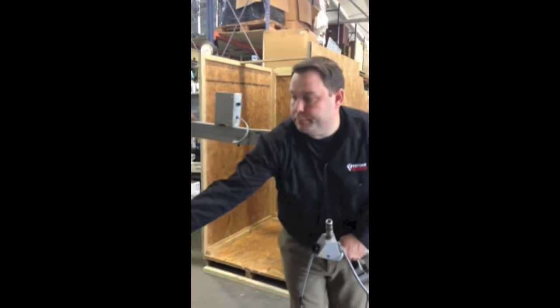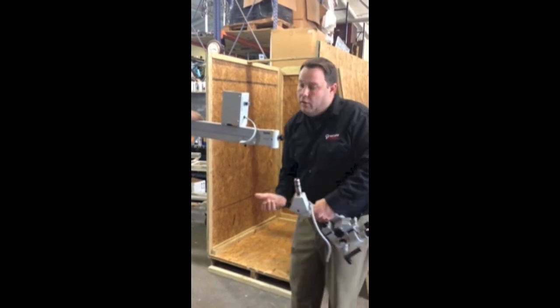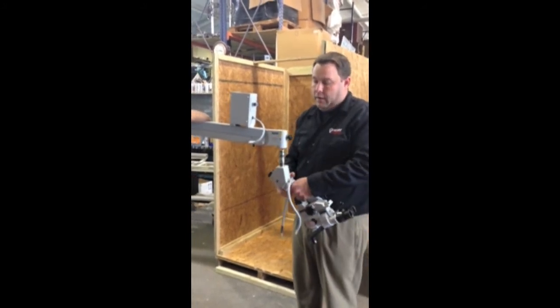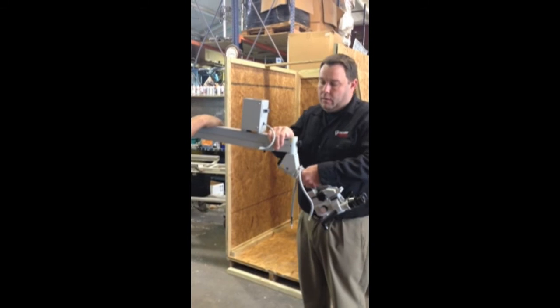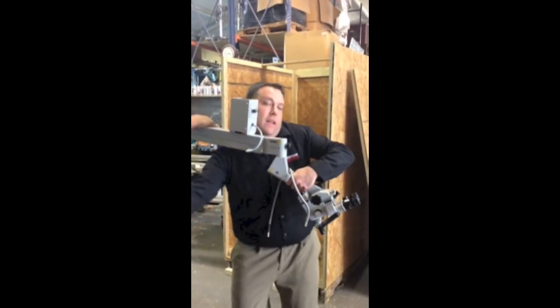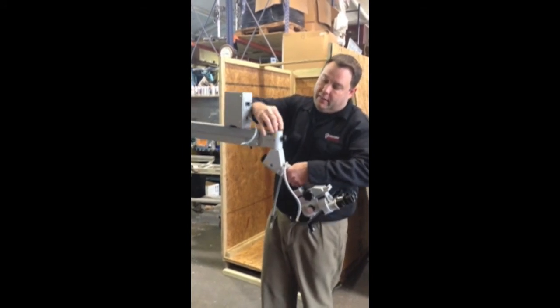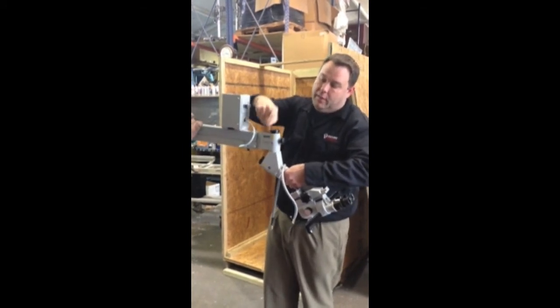You can just set it to the side. Now what you're going to do is take this shaft and put it through here until it comes out the other side. You'll hear it lock in place — you can see the threads right here. Take your locking cap and go ahead and screw that back down tight. This is going to secure the head to the arm.